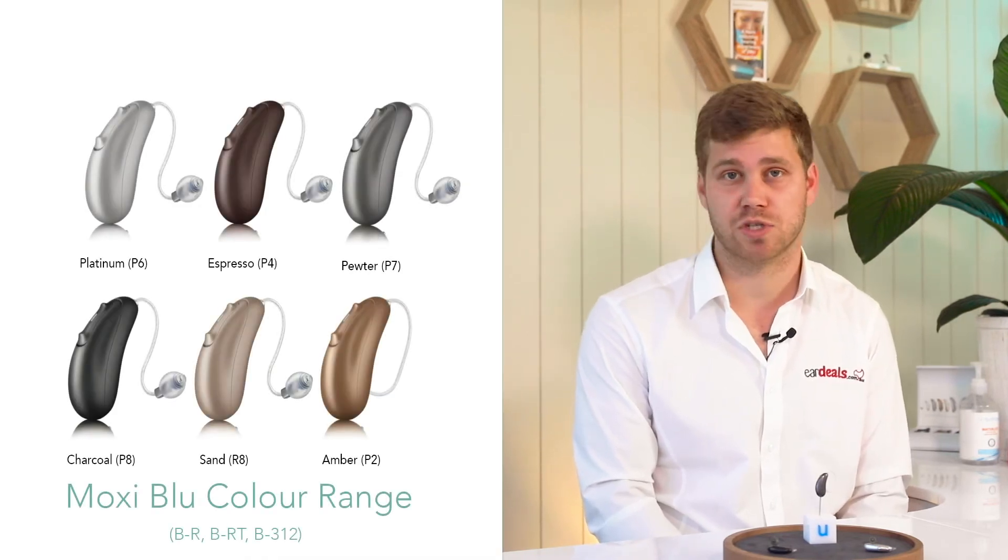When it comes to color options, you have six, and we match them to your hair or skin tone.